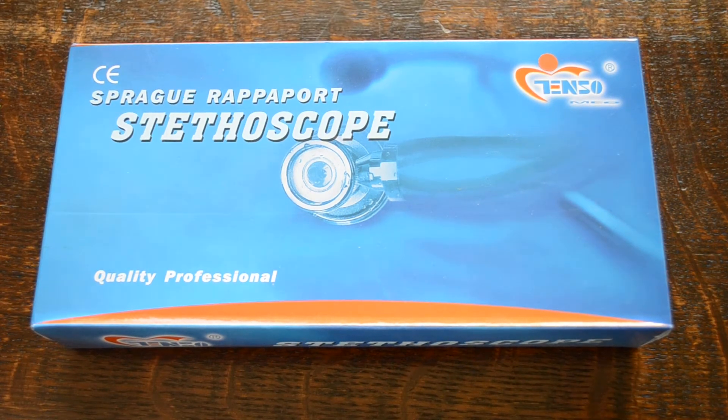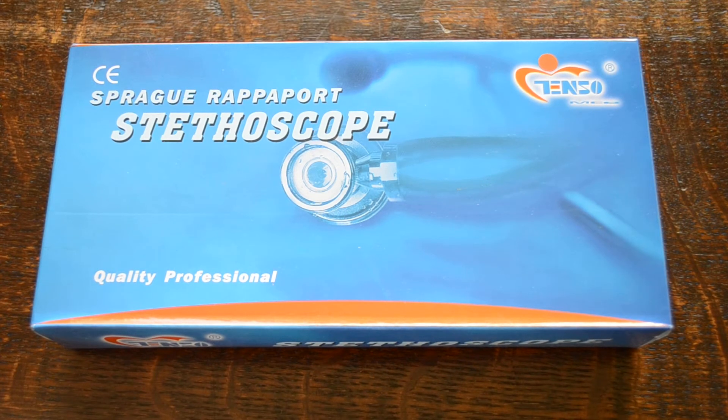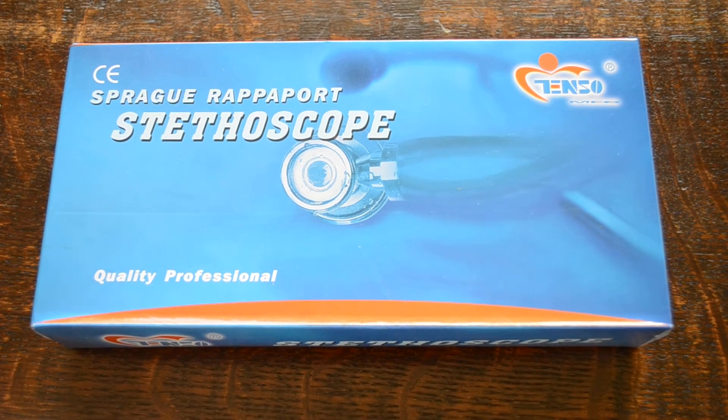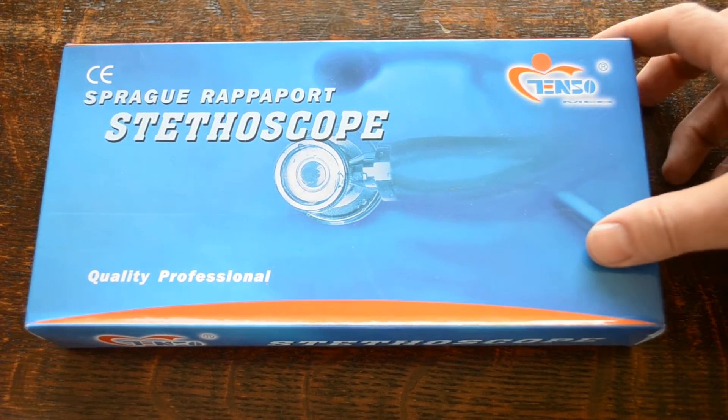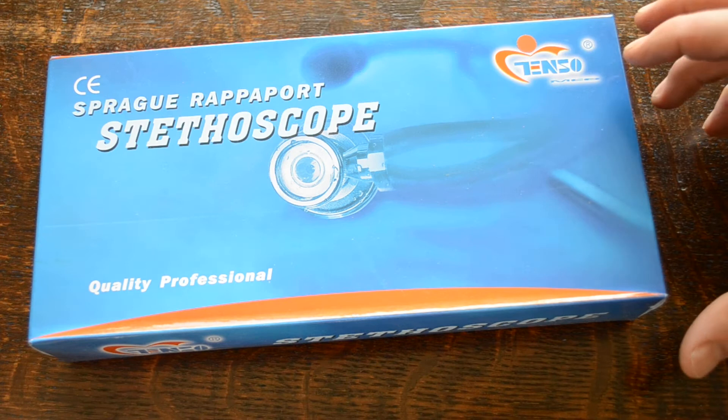Okay, welcome to this video presentation showing you the Valumed Ranger Sprague Rappaport Stethoscopes. The one we're going to show you today is the Bright Orange Tube Sprague. This is a standard packing outsert that you'll get manufactured for us by Tenso Medical.